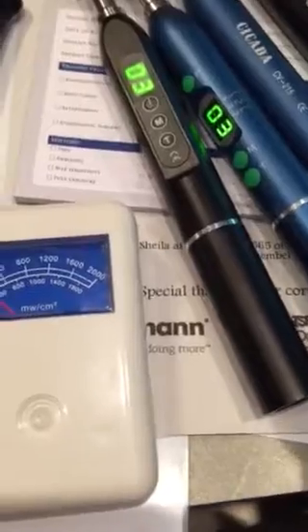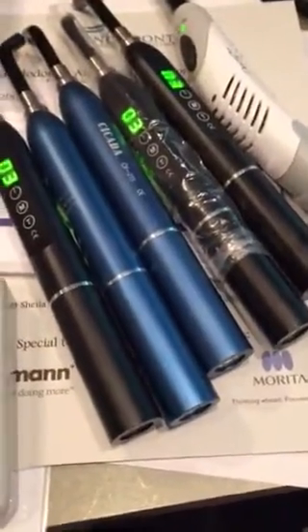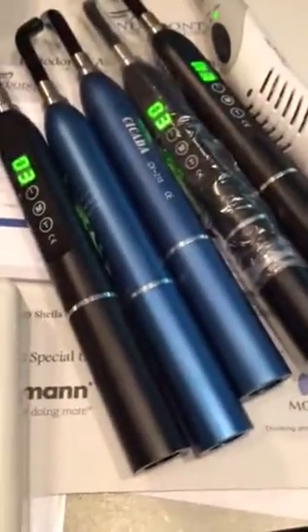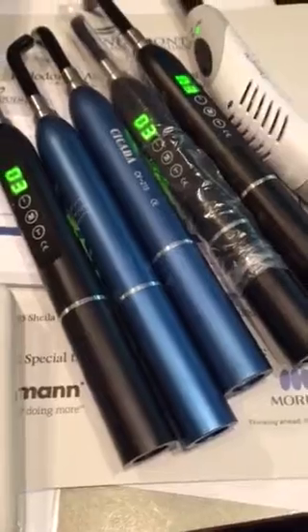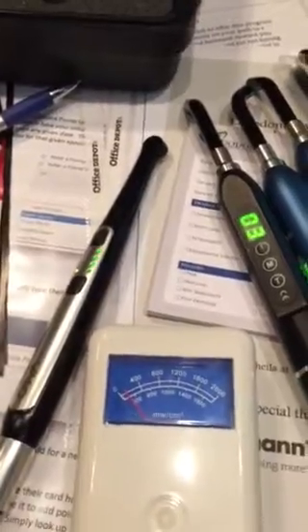The last one with the bag on it is also one thousand. So the Chinese ones: three at a thousand, two at about 800. I don't even know which is which anymore, but I've been using the Chinese ones exclusively for about two years, except for veneers. The Demi Plus just sits in a box and looks pretty.